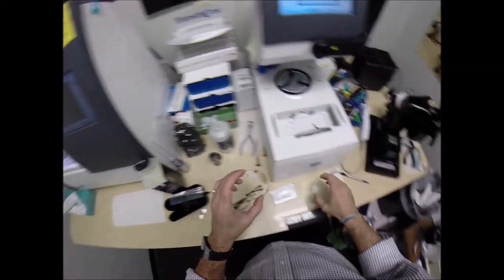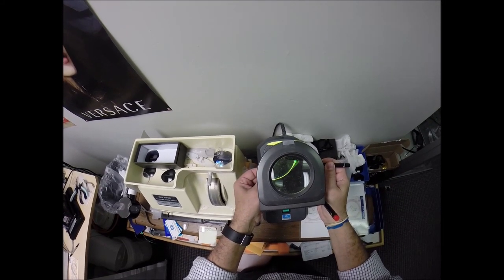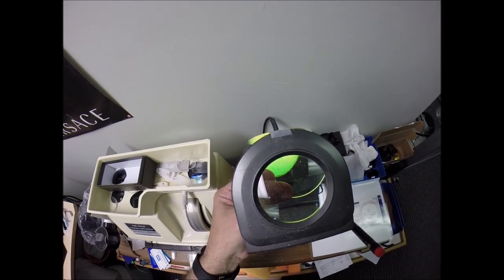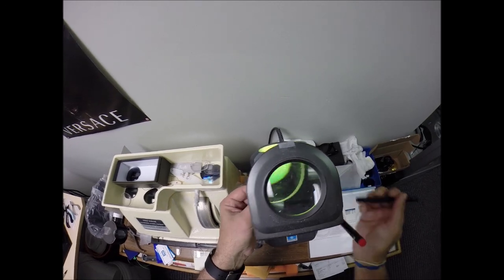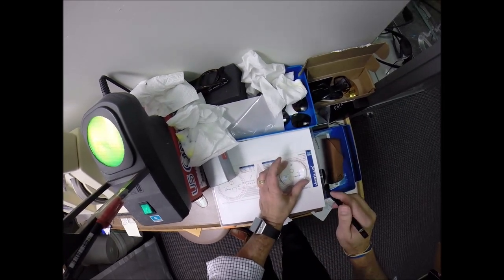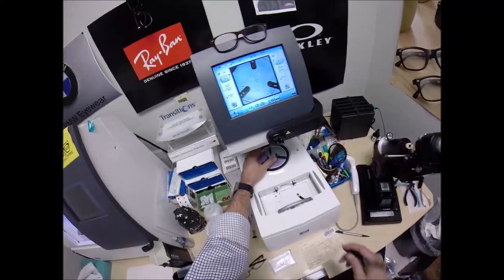I've gone ahead and put dots on your lenses. Every invisible bifocal comes with little laser engravings in them — it tells me the brand. This insignia is the Essilor Ideal Advanced. P stands for poly. On this side, what is underlined, there's a little laser mark that says 15 — that stands for 1.50 bifocal strength. Those two dots, one here and one there, are inside the engraving, and that tells me where to lay it out over these two dots. That is the optical center where your pupillary distance is. I lay that out there.